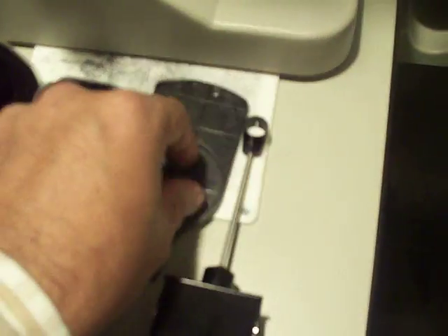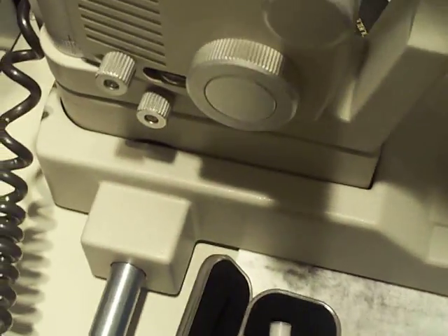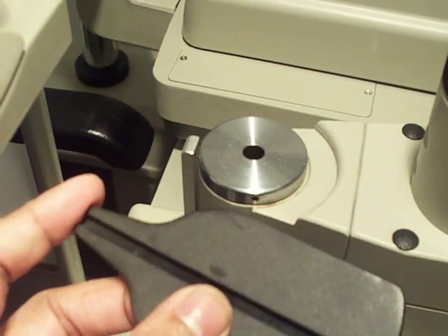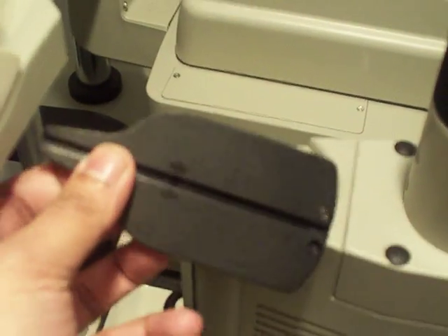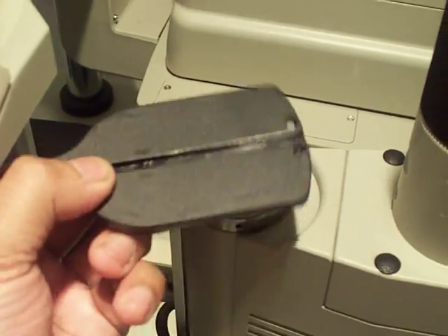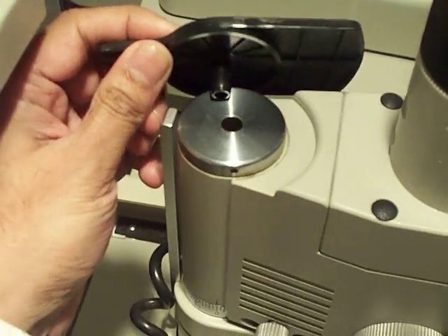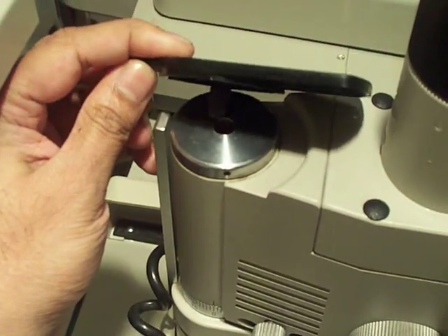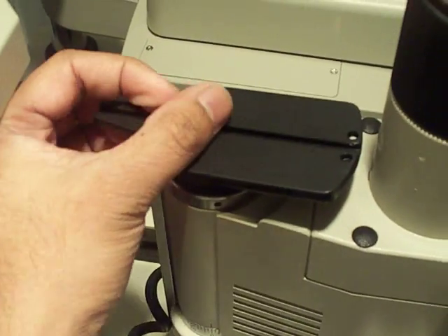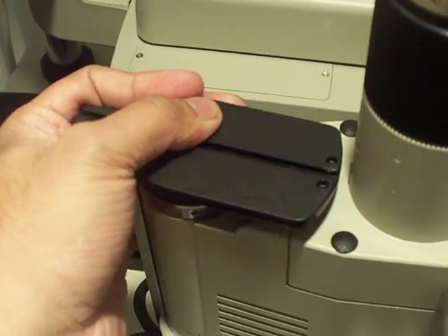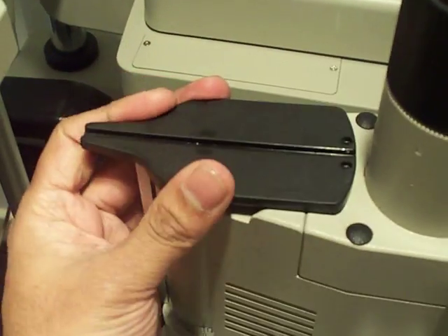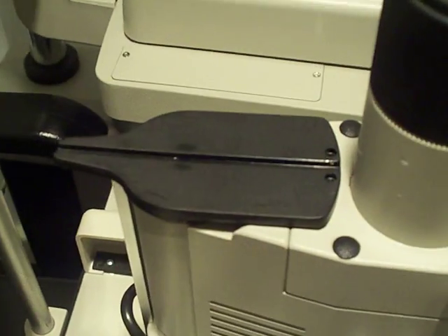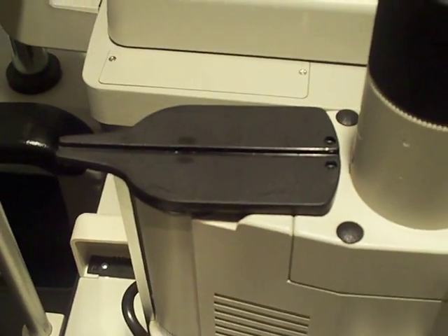You take your resting plate with the pointing edge toward the patient and just place the plate in the hole. Rock it in place till it doesn't move anymore.